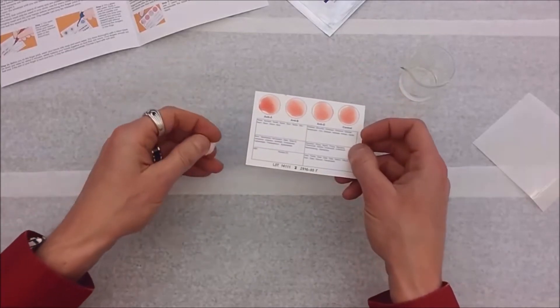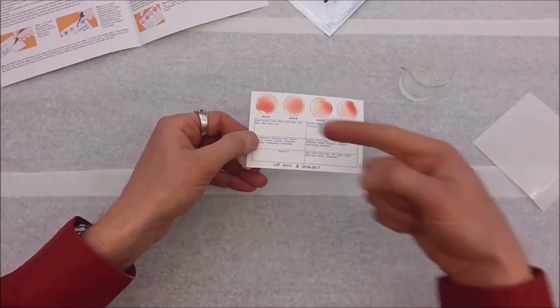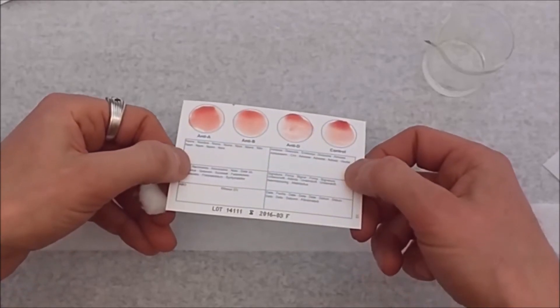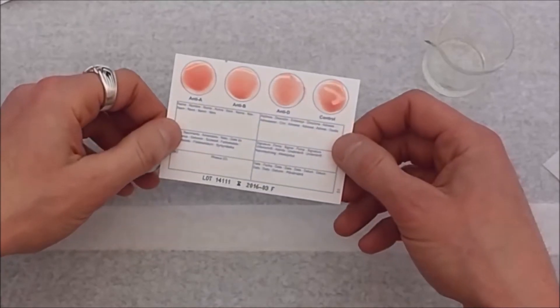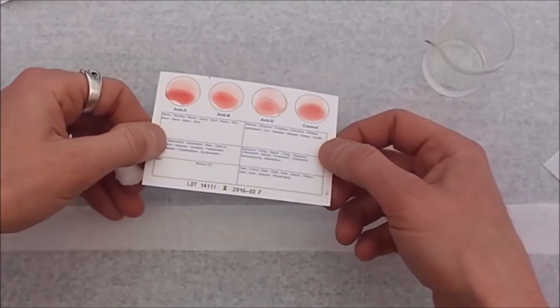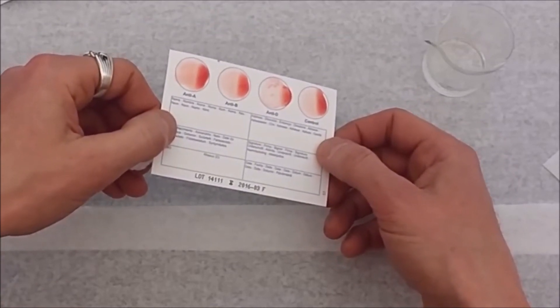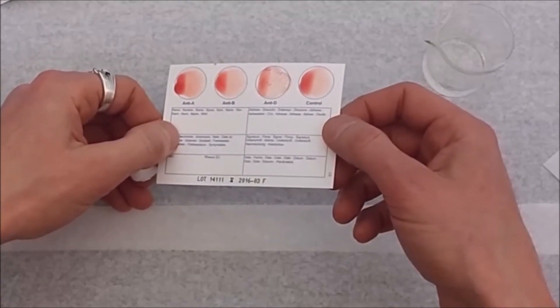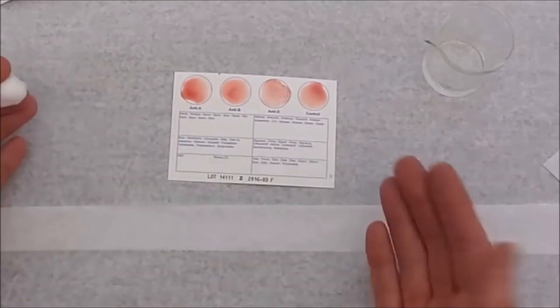You may notice that one of my circles is already starting to react. The next thing to do is tilt the card slightly in each of the four directions and hold it tilted for ten seconds in each direction, letting the liquid move across the surface. After tilting in all four directions, make sure the liquid is pretty even — and we're done.